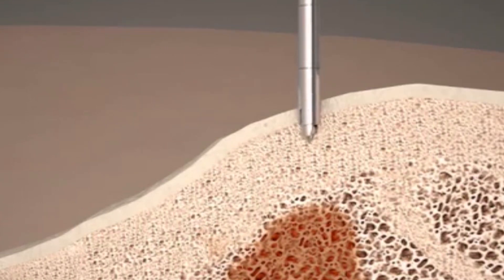While the drill tip bores into the bone, the edges of the cannula simultaneously cut around the drill, directing bone debris into the grooves of the drill and out through the cannula. The unique technology of these two elements working in conjunction allows the introducer to penetrate and travel through the cortex with less effort, increasing tactile control.